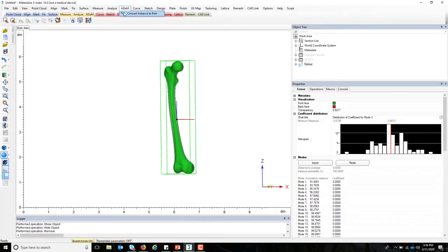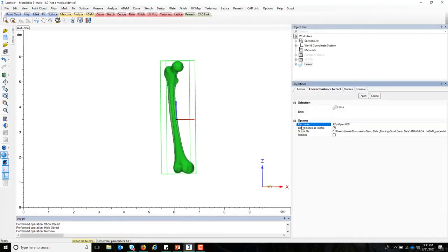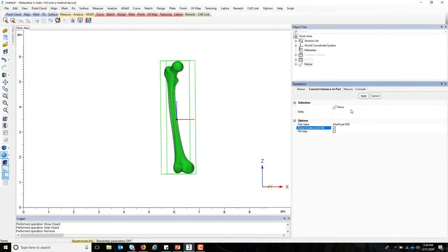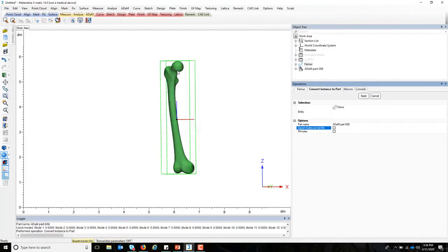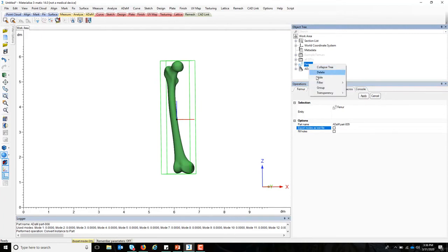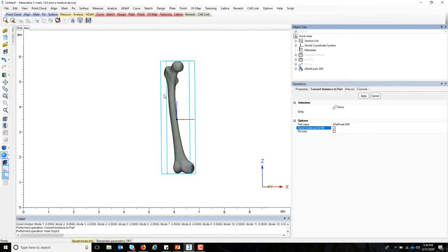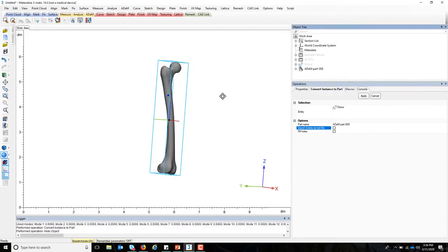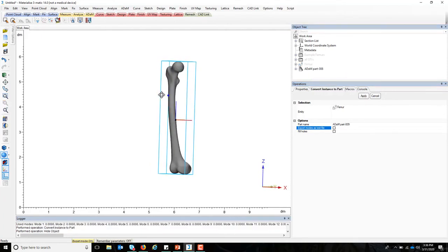And finally, you can convert those instances to parts. This is an important step to create an STL file. So like I mentioned, the femur as it stands, as you're playing and manipulating the modes, really is just the shape model. It's a rendering where you can create different sizes, different instances, different shapes. But in the end, what's most important is that you've created an STL file.